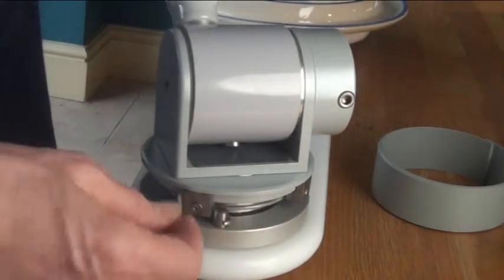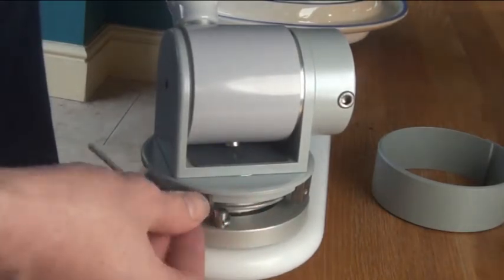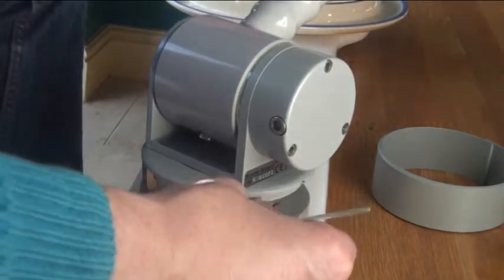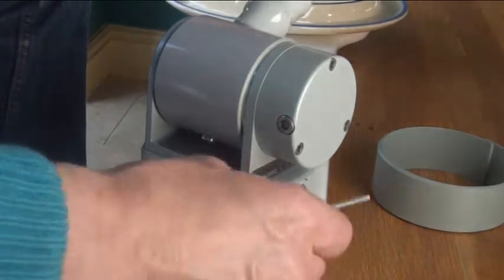Do make sure it's nice and tight so that it digs into and grips this top ring. To adjust the backward stop it's the same procedure — you adjust it so that the spoon can't fall off the back of the plate.